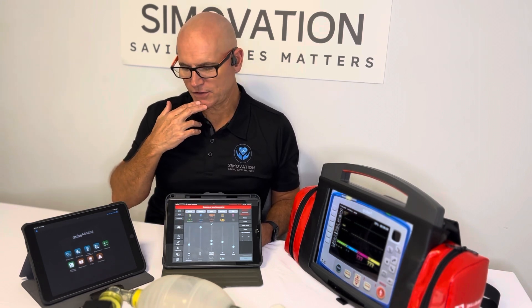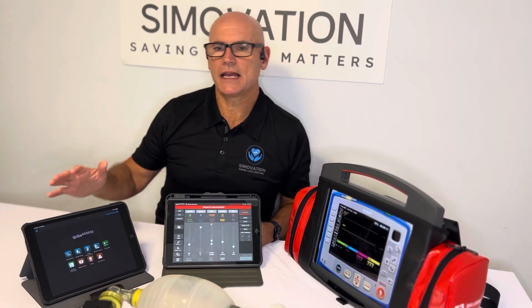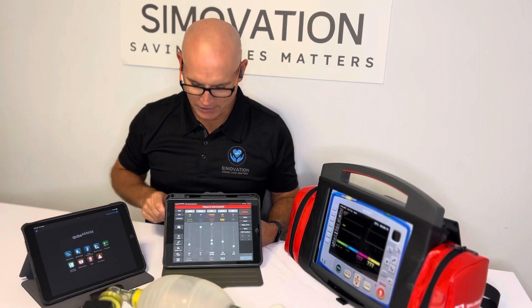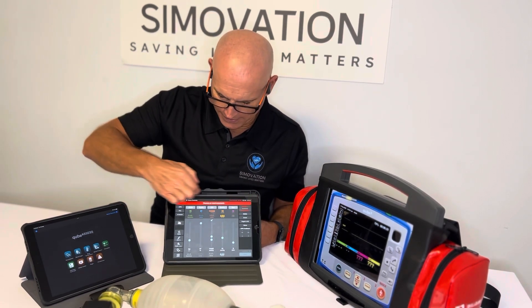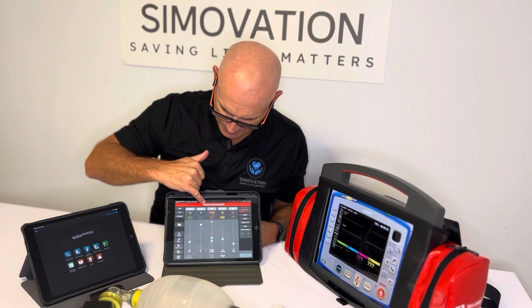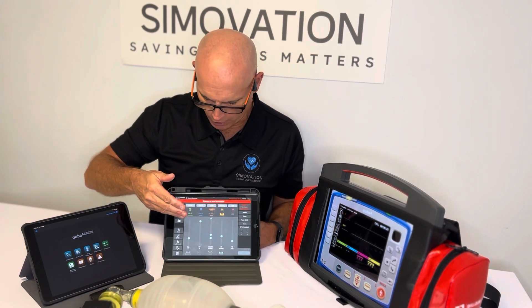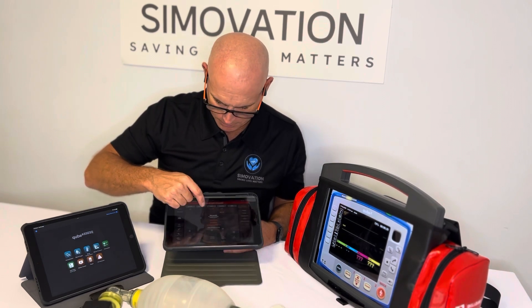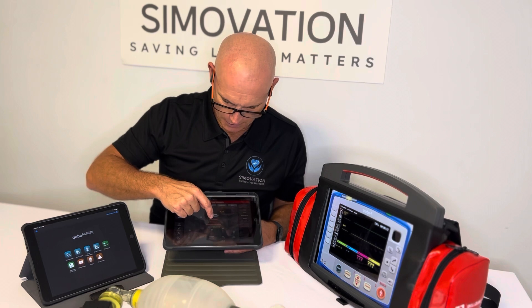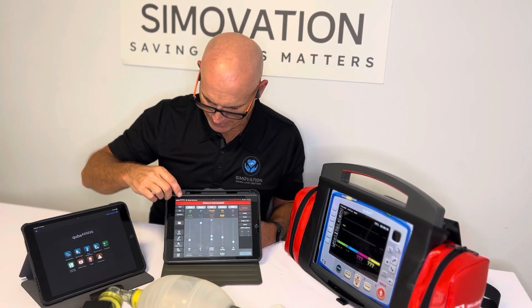If the participant wants to listen to heart, lung, and bowel sounds, they can then go to the participant tablet, which I'm going to show you separately in a moment. If I come back to the top of the graphic user interface, you'll see there's a red button saying pause or end scenario because I started the scenario earlier. If I wanted to stop it, all I have to do is press that and then press end scenario. But I'll just keep the scenario going for now.